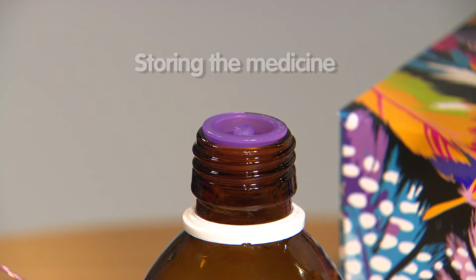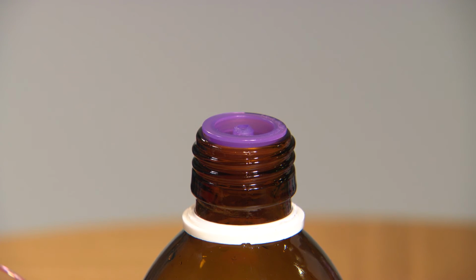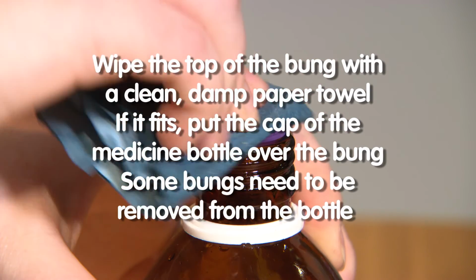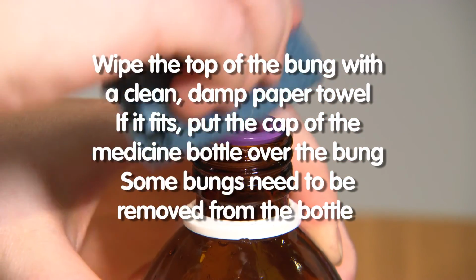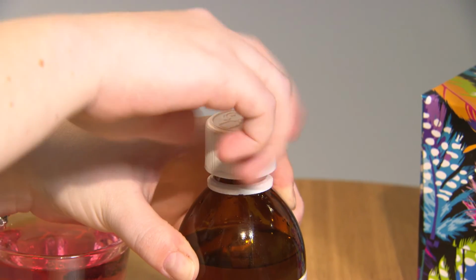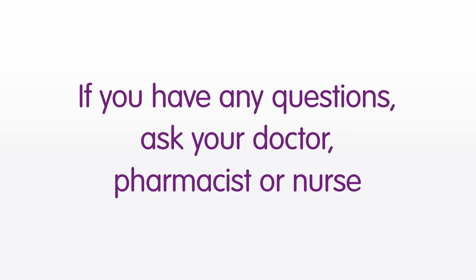If the medicine bottle has a rubber bung, you can usually keep it in the bottle all the time and put the cap over it between doses to keep it clean. You just need to wipe the top of the bung with a damp paper towel each time after you've given the medicine. Some bungs need to be removed from the bottle and washed before and after each use, but you can check this with your pharmacist. If you have any questions about this or are not sure about anything, then ask your doctor, pharmacist or nurse for advice.